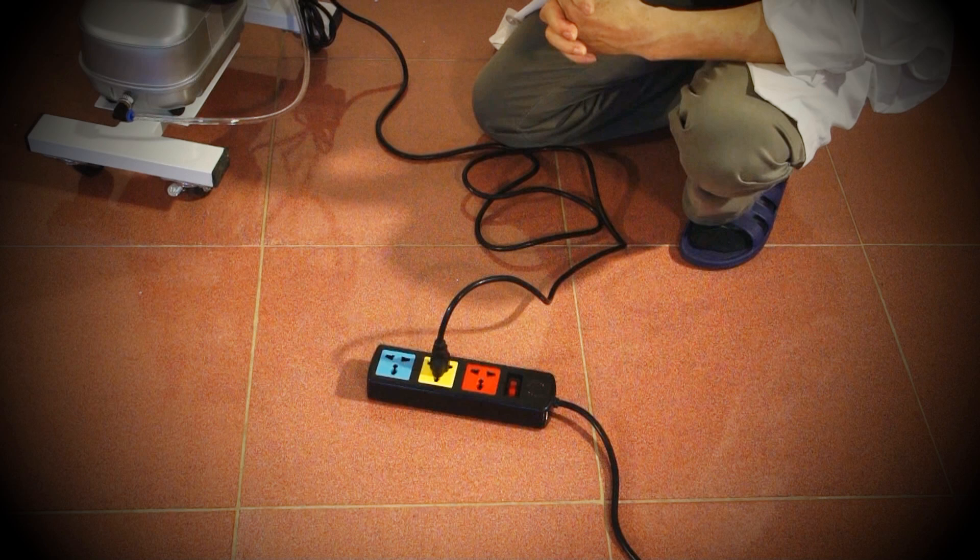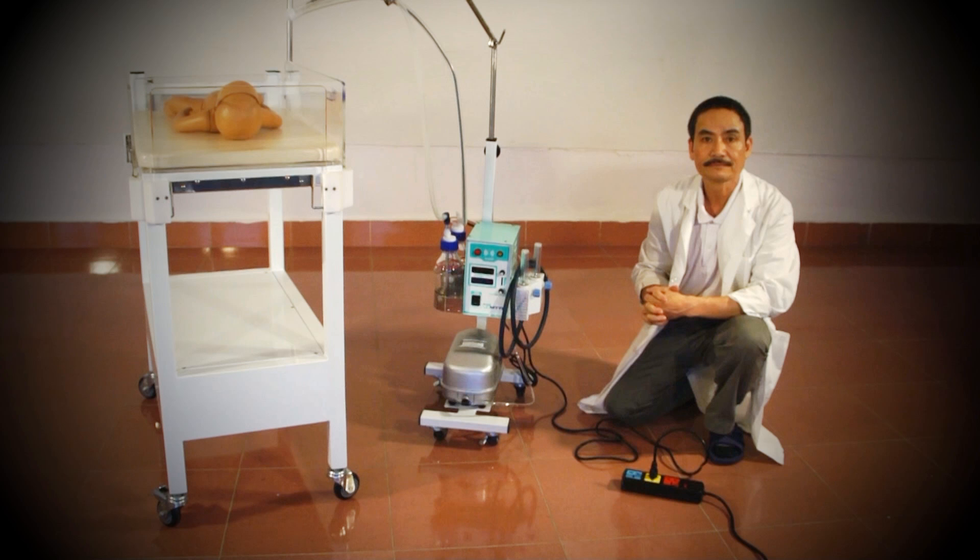If it is different, please use the appropriate adapter. The CPAP is now connected to the power and oxygen sources.